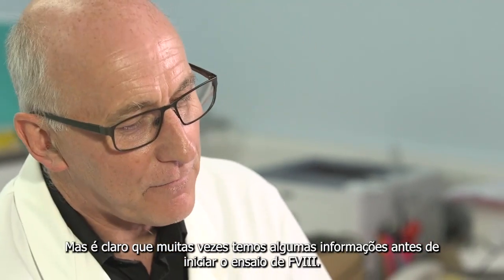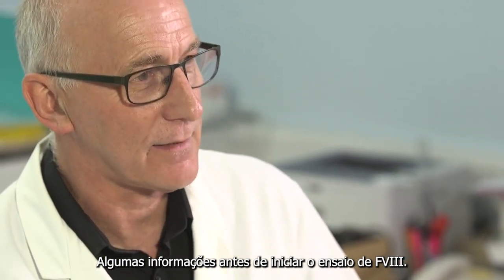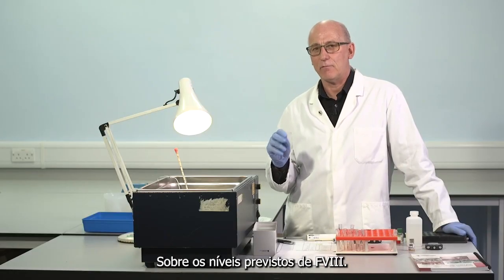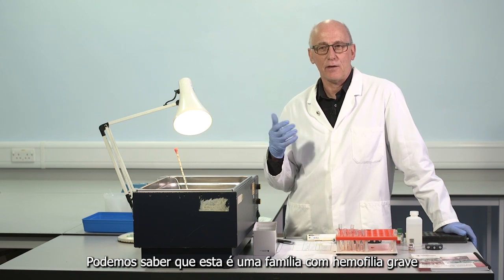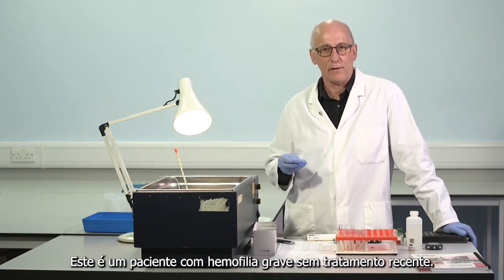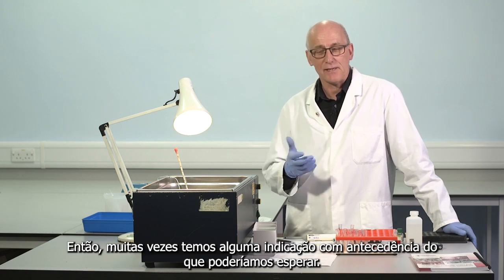But of course we often have some information in advance of beginning the factor VIII assay. We often have some information about the anticipated levels of factor VIII. We may have past results on the same patient. We may know this is a family with severe haemophilia. This is a patient with severe haemophilia without recent treatment. So we often have some indication in advance of what we might expect.